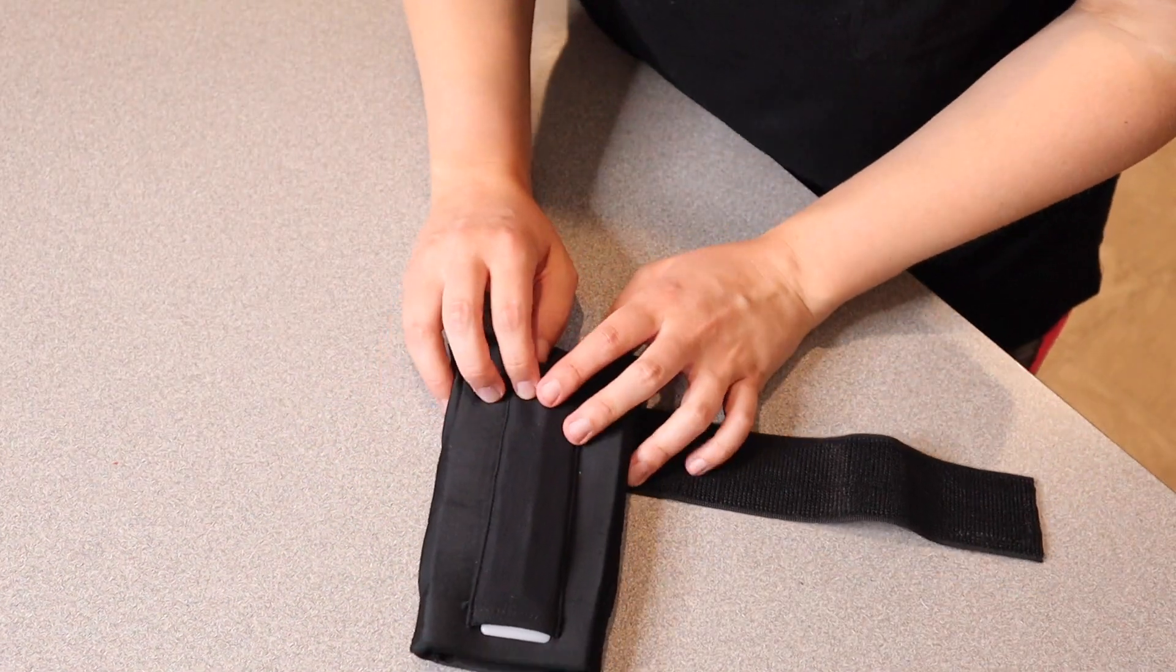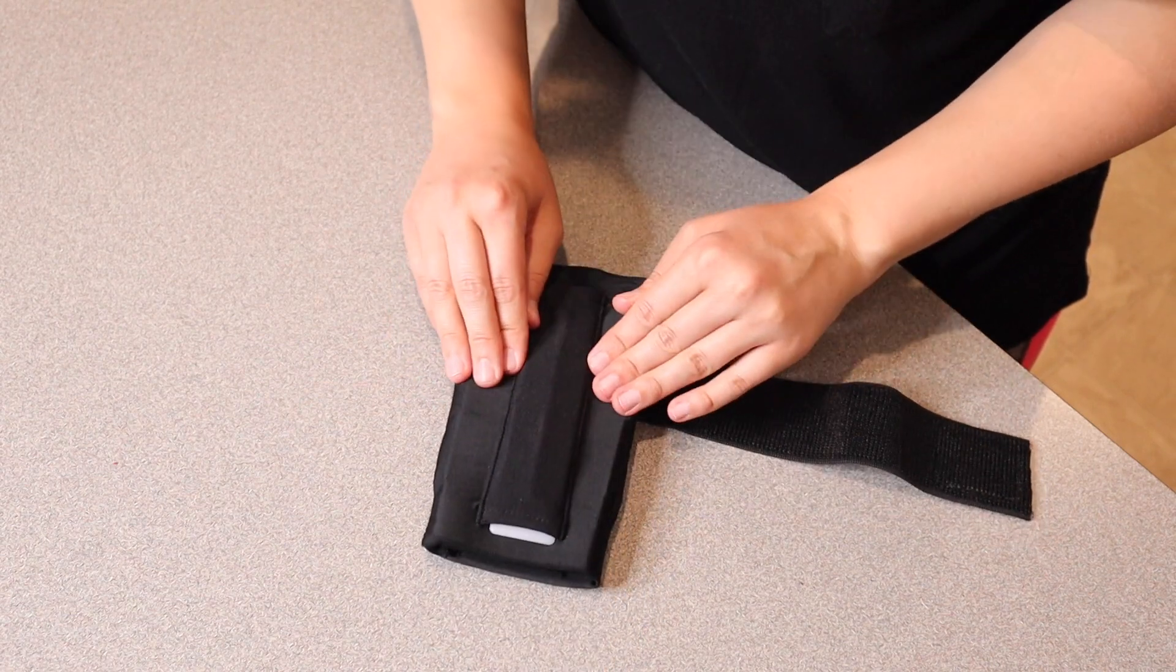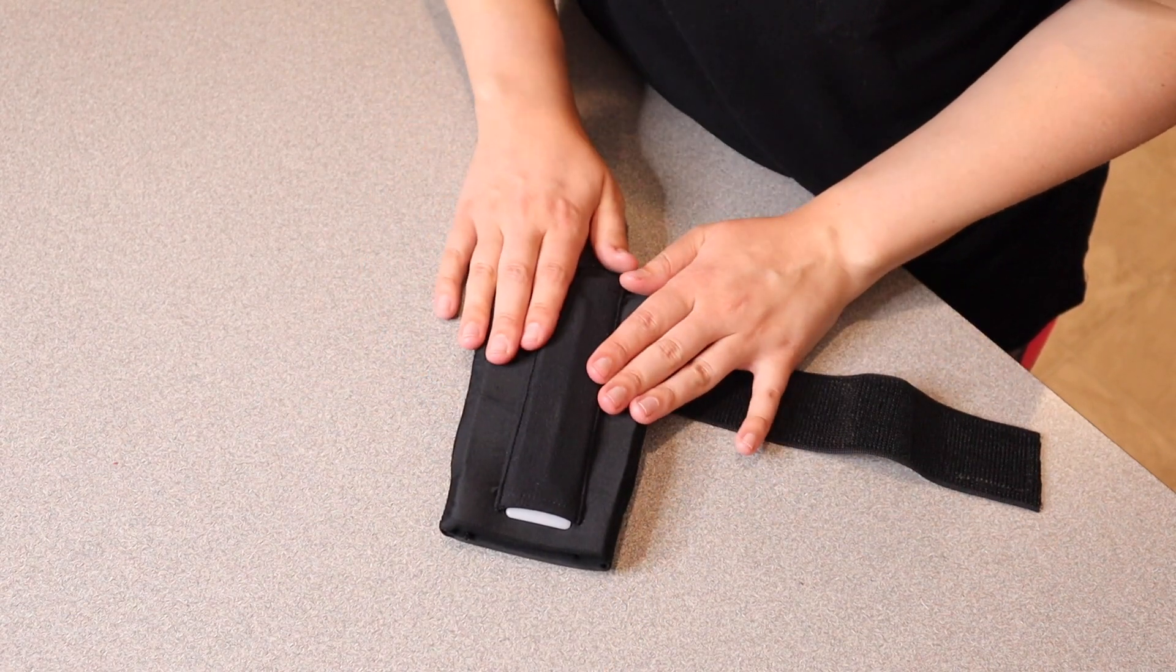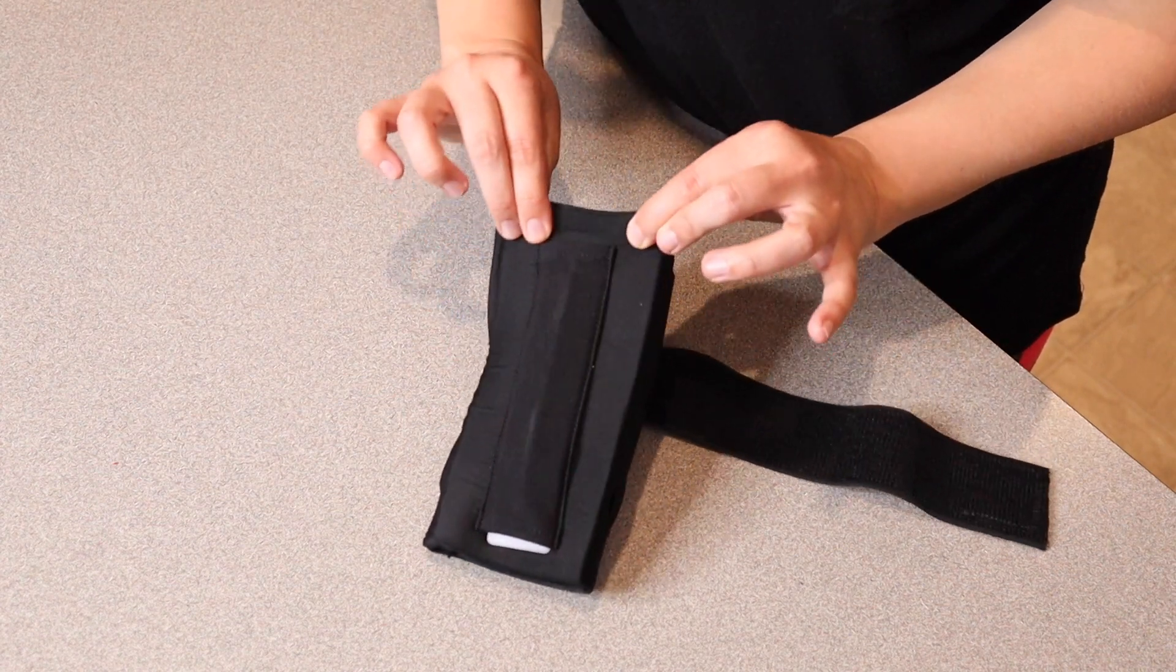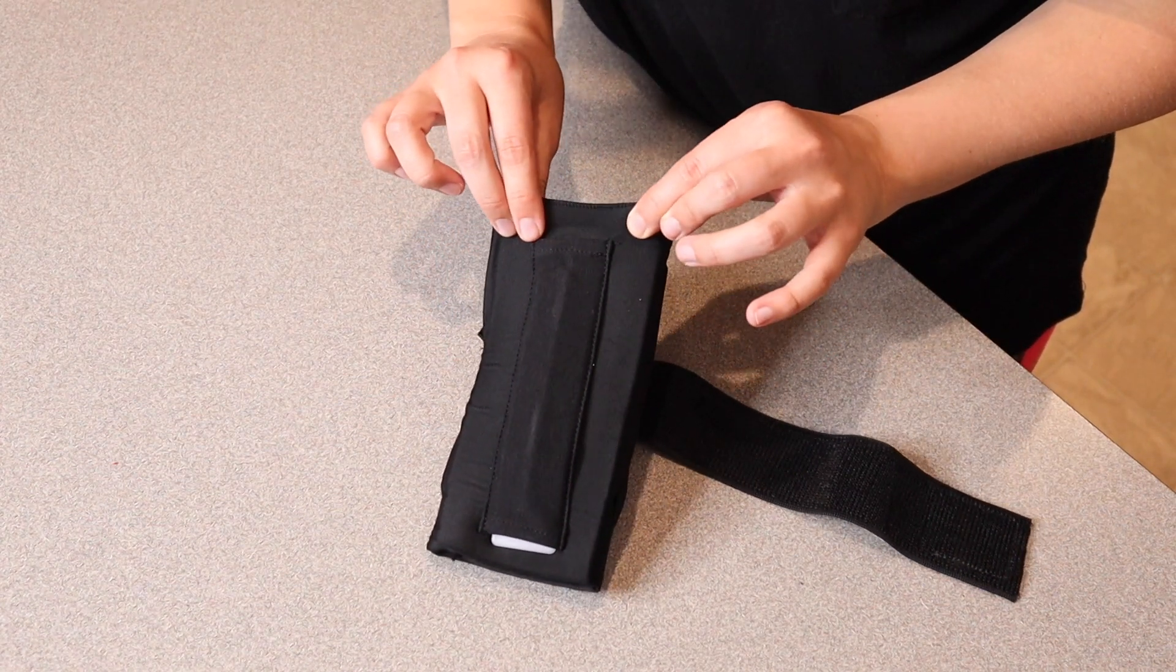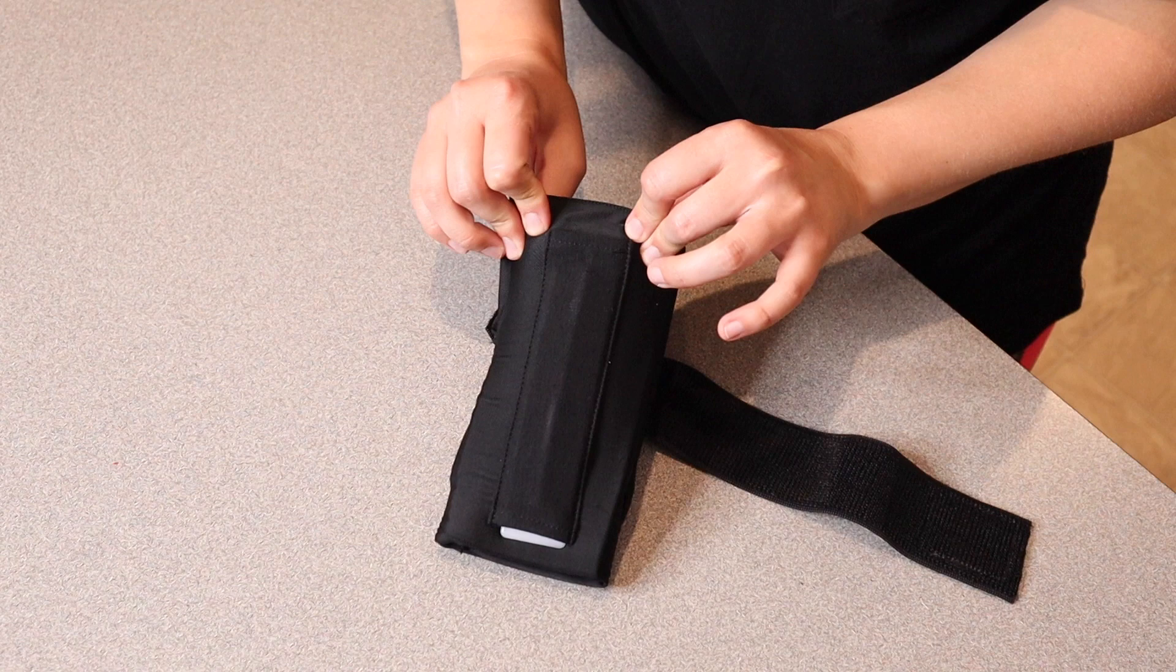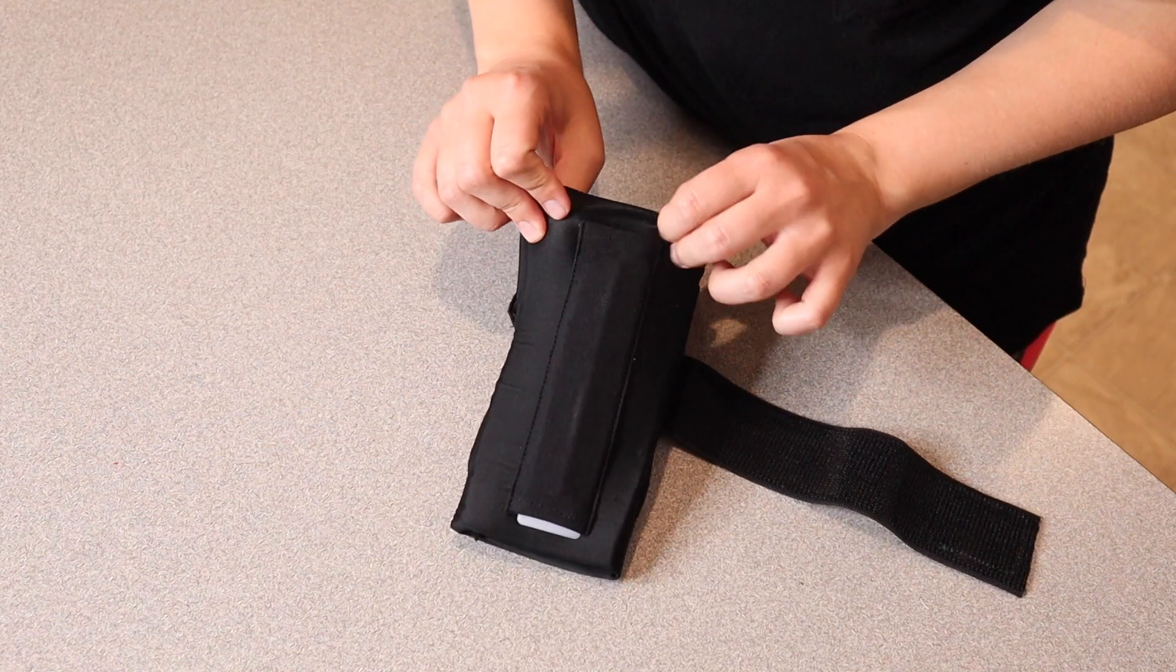One of the things that I really like about this ice pack is that you can actually use it for both hot and cold therapy. If you're gonna be using this for cold therapy you're gonna put this in the freezer for about four to six hours. Obviously if you need it colder or more frozen you can keep it in the freezer even longer.